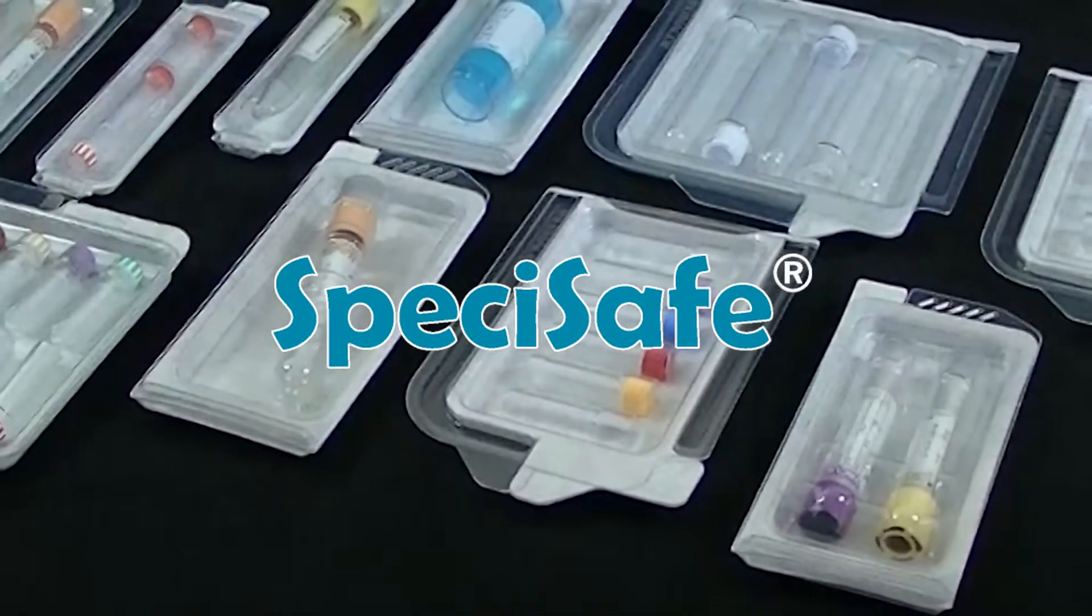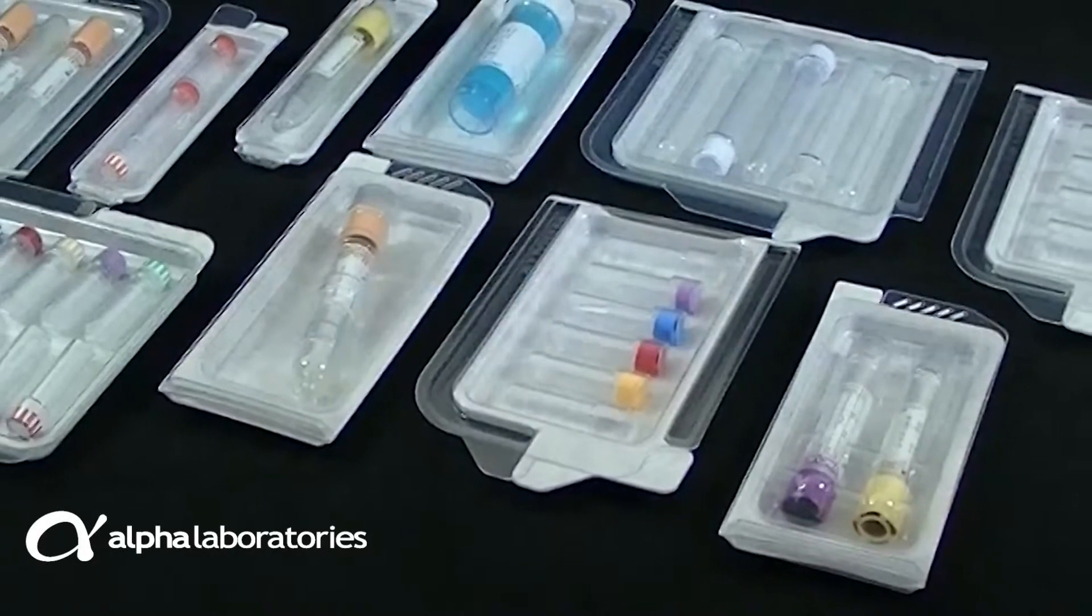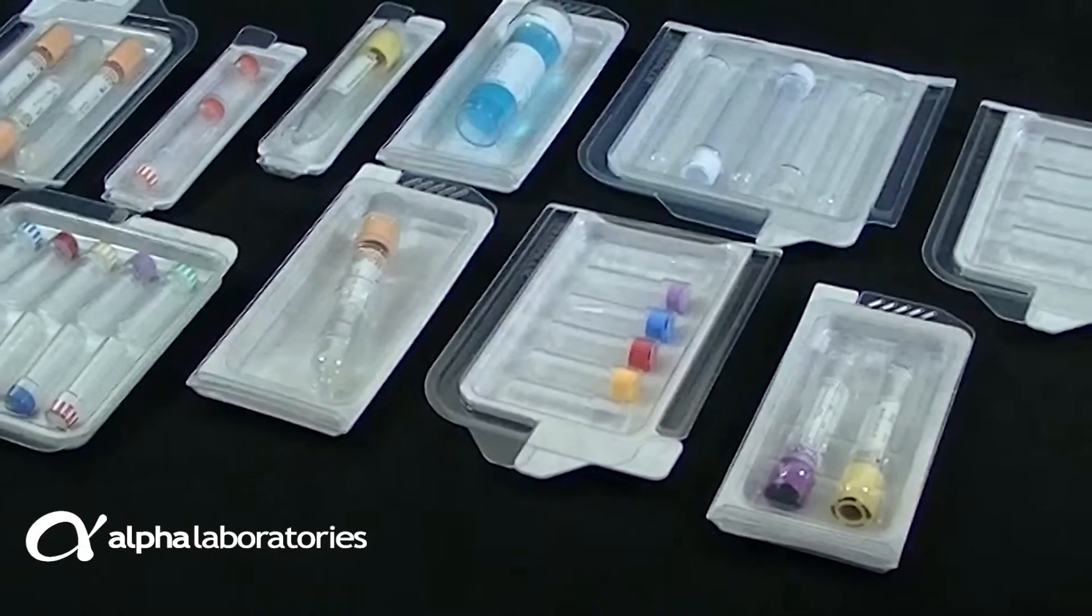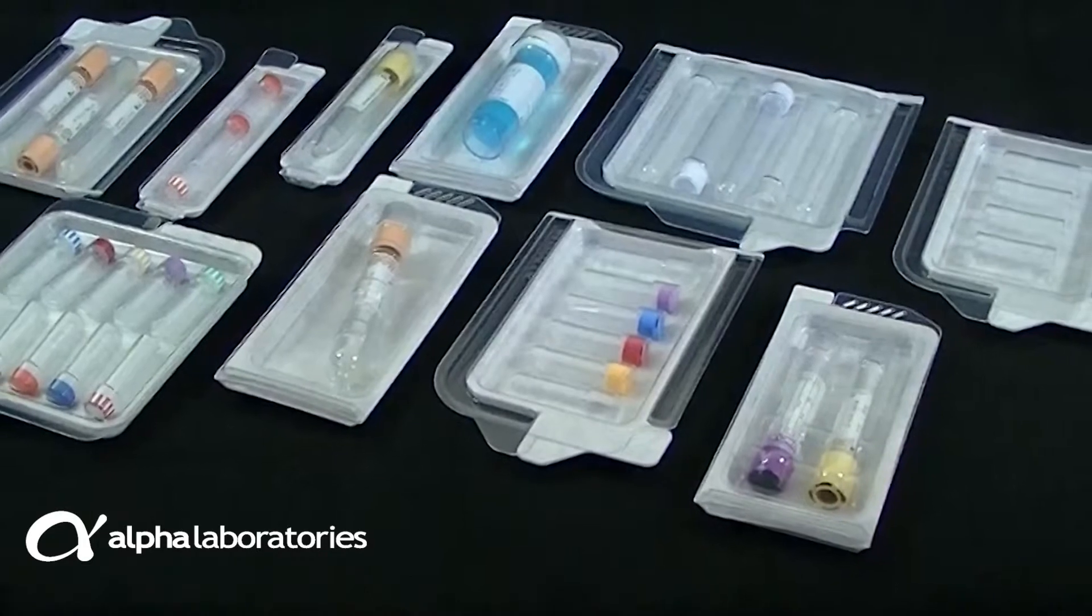Specisafe Transport Packaging from Alpha Laboratories provides a complete solution for mailing biohazardous samples such as blood, urine, swabs or faeces.